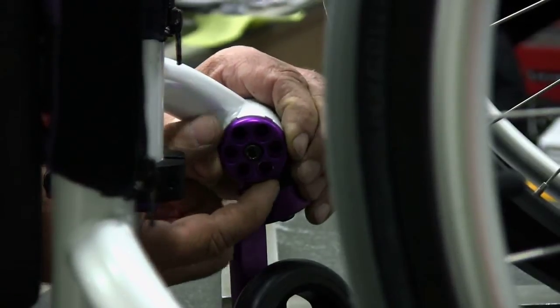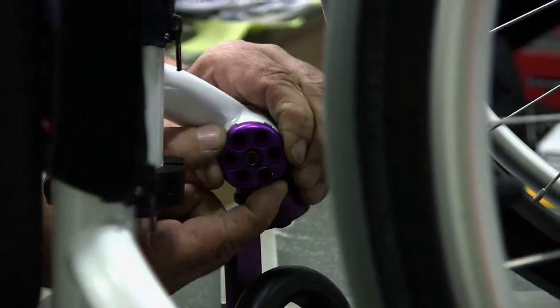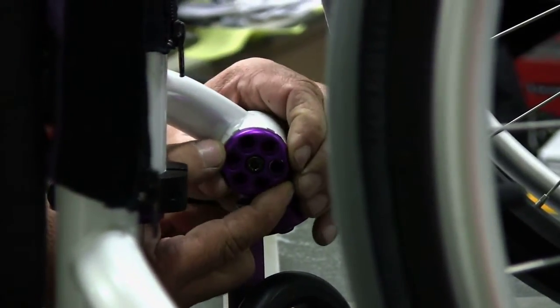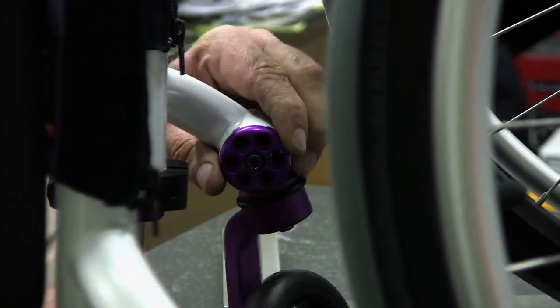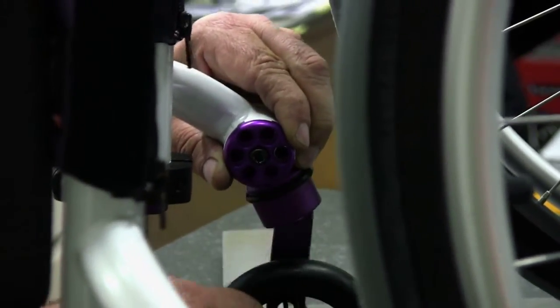Step 4: Using a drafting triangle or similar 90 degree angle tool as shown in figure 5-8 in the owner's manual, rotate the fork until the flat edge of the fork is perpendicular to the level surface.